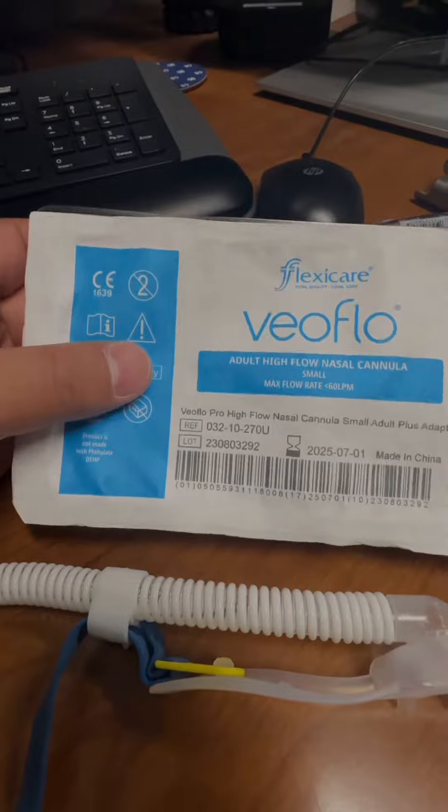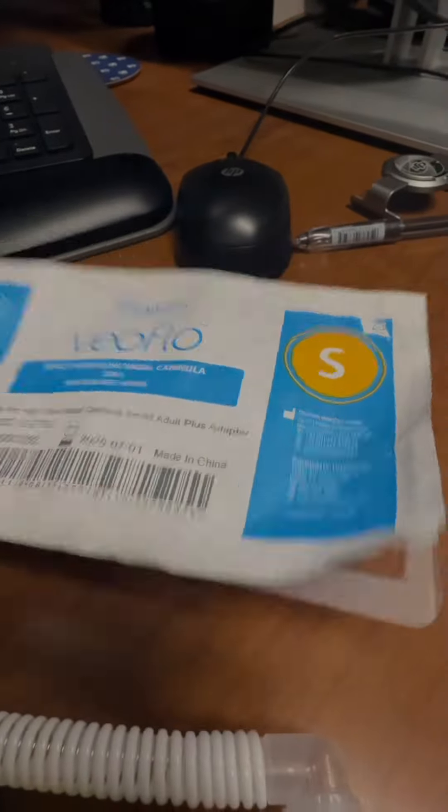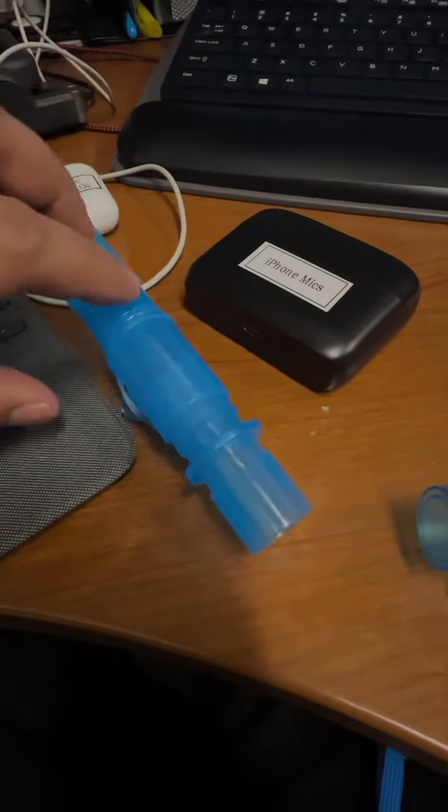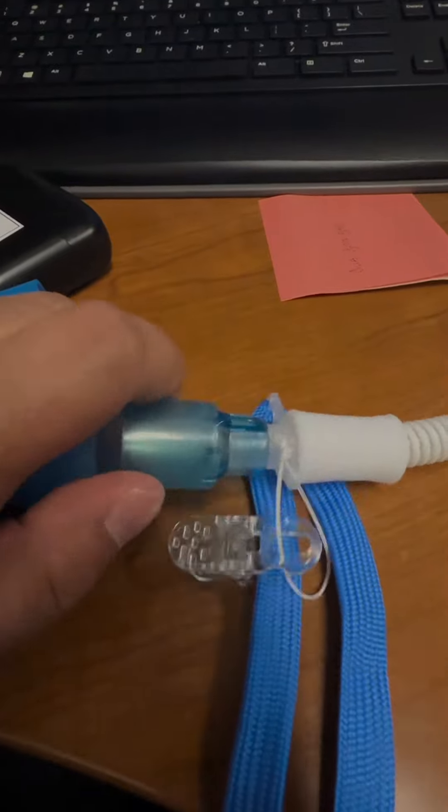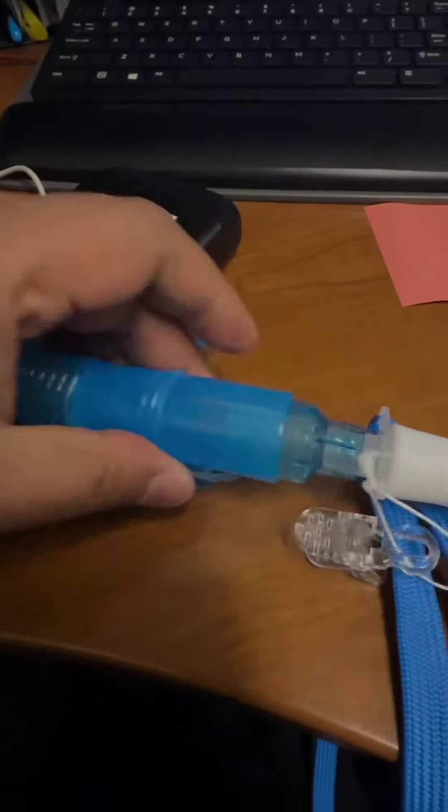It's going to also be compatible with these cannulas right here. Out of the package, you'll just have to take this and take this 15 out and it should fit right in.